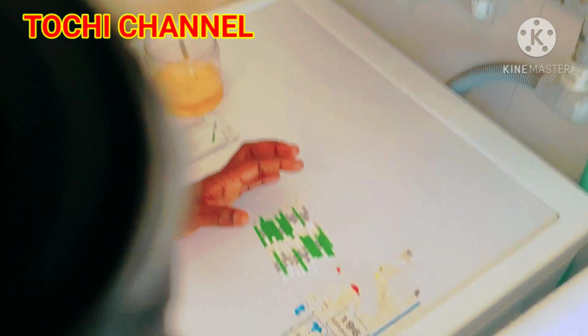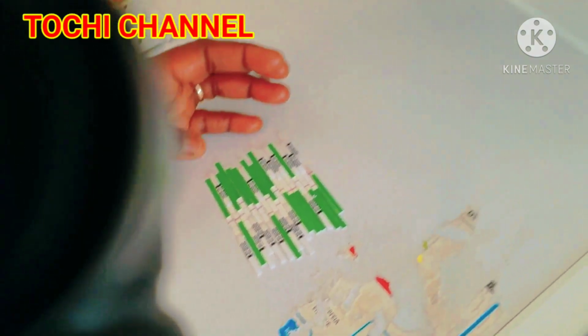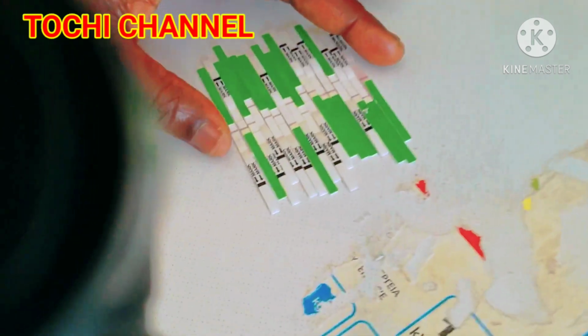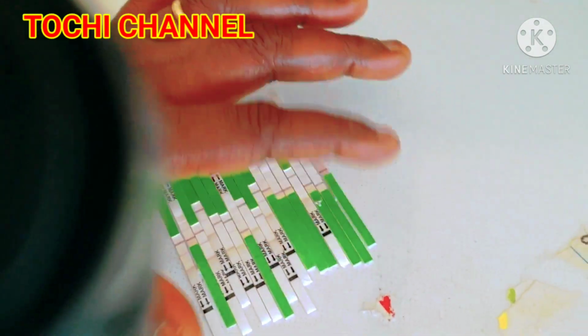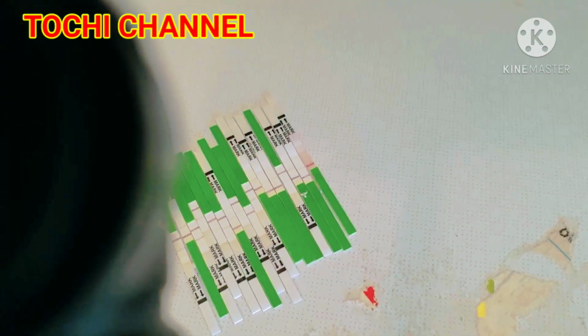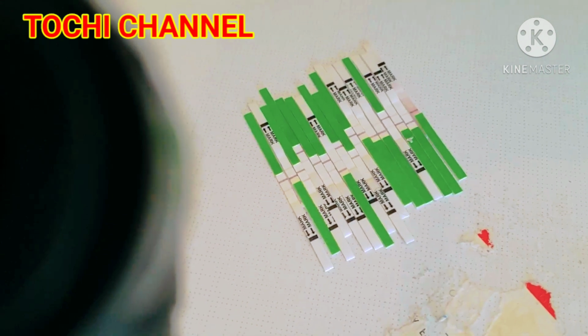Just as I said earlier, you have to use your 10 o'clock urine. Do not use your early morning urine. And before you do this test, make sure you don't take any liquid for 4 hours before you do this test. If not, you will not have a positive result. You have to wait to read your result.